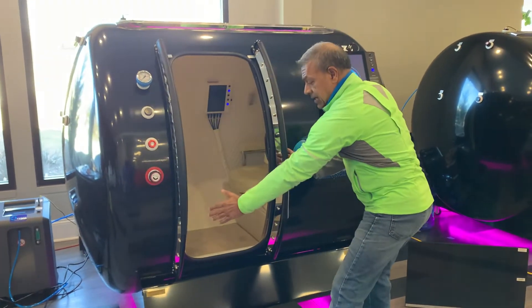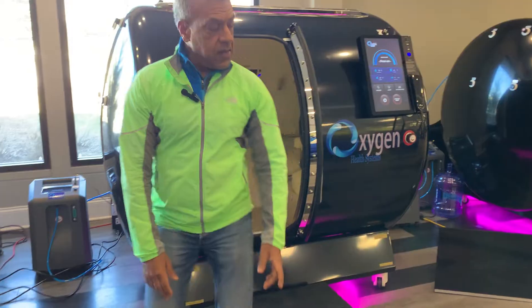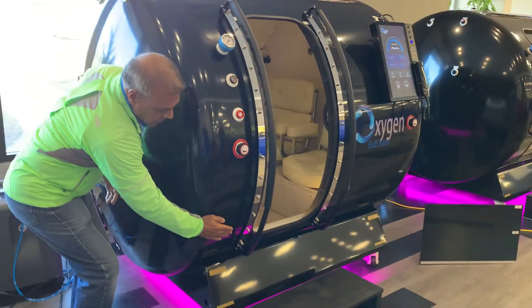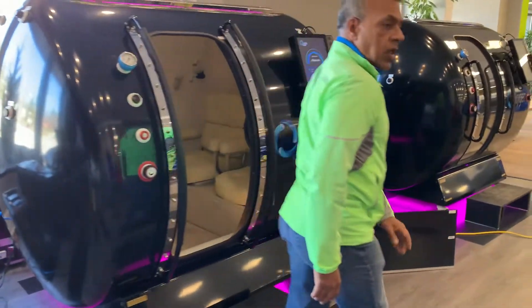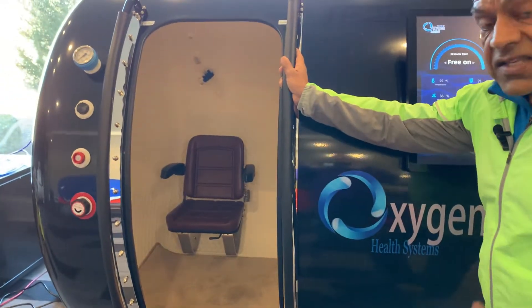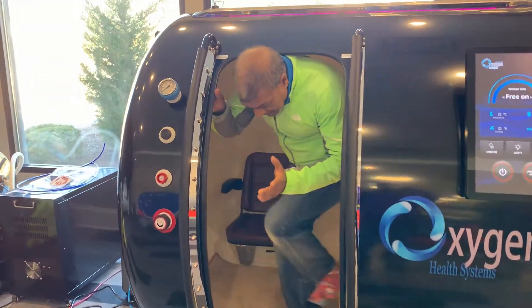There's a really large handle for you to grab onto as you get in and out. Look at that — from the corner, the long profile — you'd have plenty of areas to grab this handle. Now notice how easily I'm going inside the chamber, just like that.